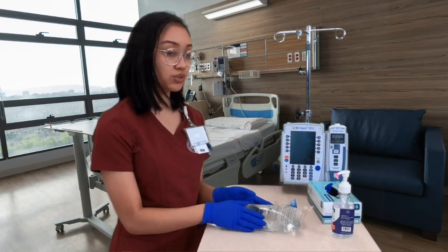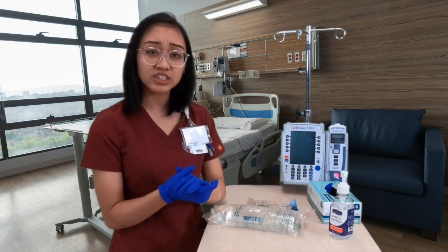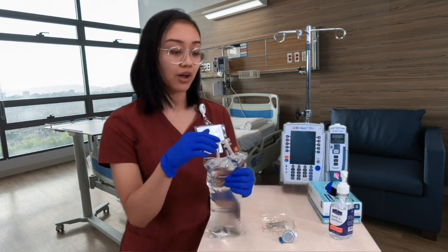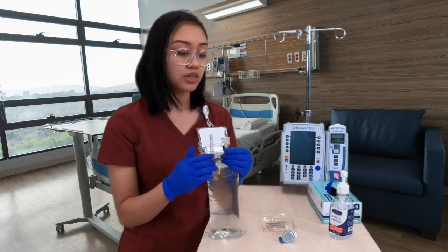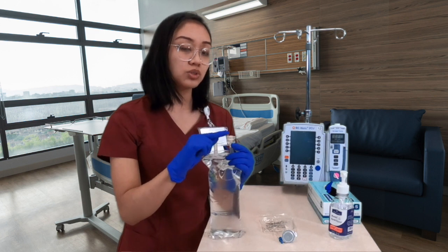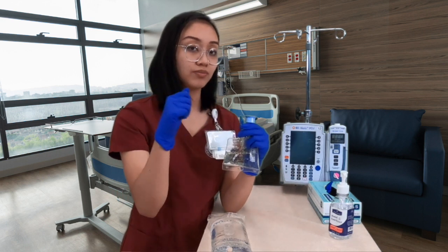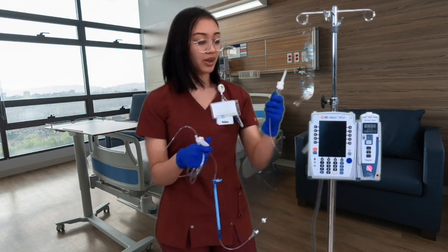I always do hand hygiene and put on gloves before I do anything. Before spiking, I want to show you how to remove the tabs on the bag. This one has little wings — these are twist-offs, you twist the top one off. For bags with a blue cap, you just pull it off. So: blue cap — pull off; wings — twist off.